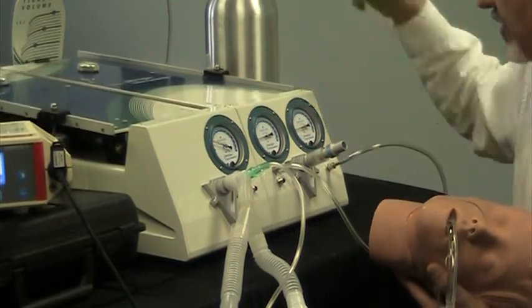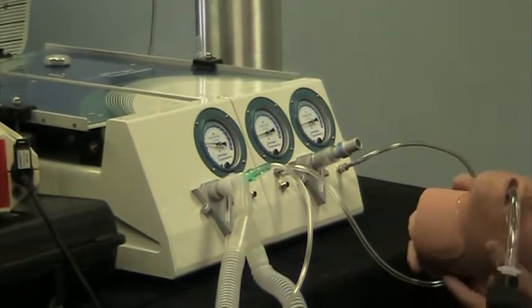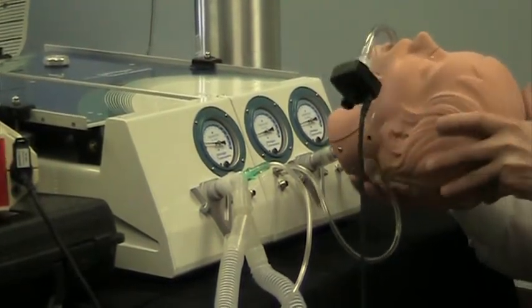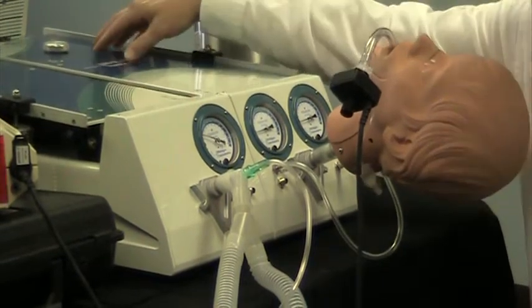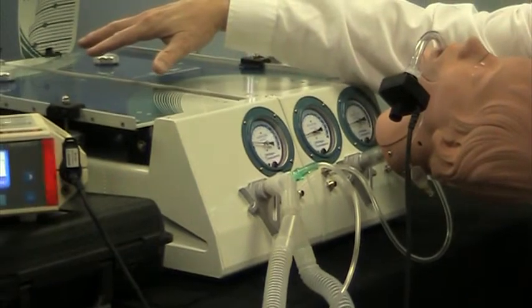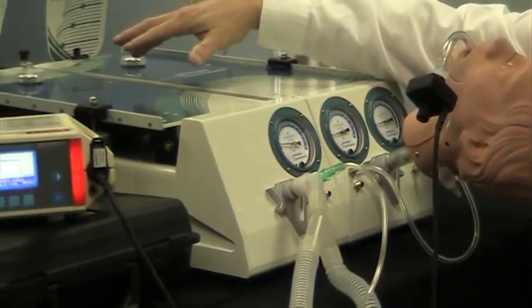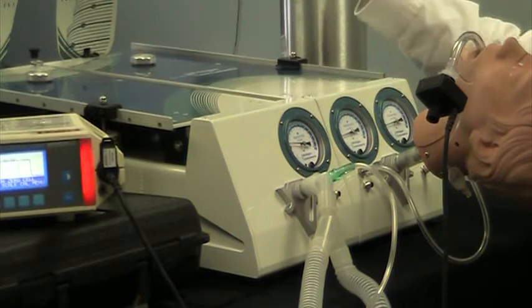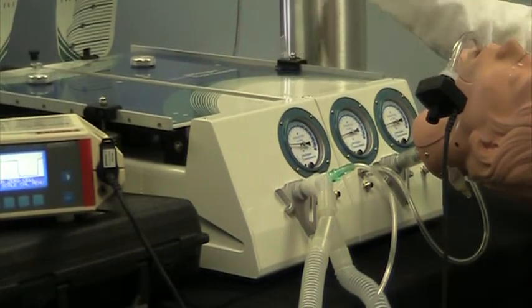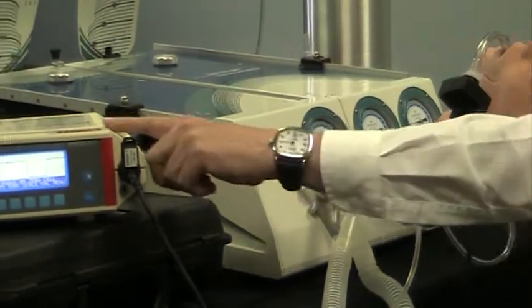Right now we are blowing carbon dioxide into the test lung. The alarm is going off because the sensor is not yet seeing the return. CO2 is going into the lung and we are breathing this lung using our spontaneous breathing setup — that setup is found in another video on our site. As that CO2 gets exhaled, we're measuring it here with the sensor for the CO2 monitor.